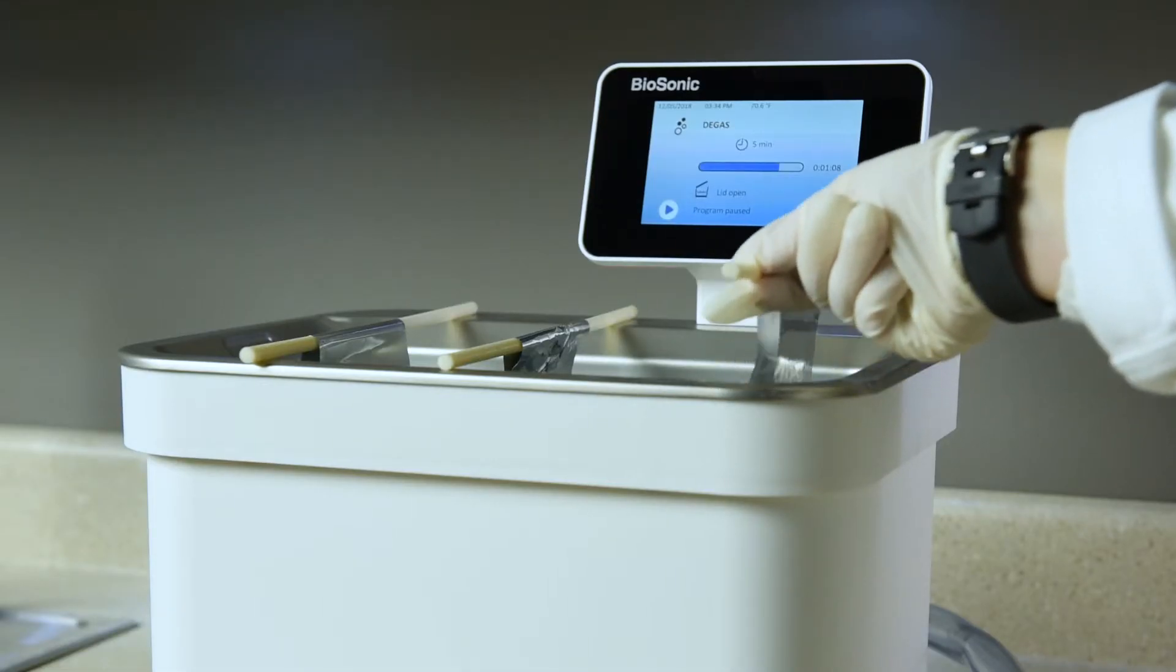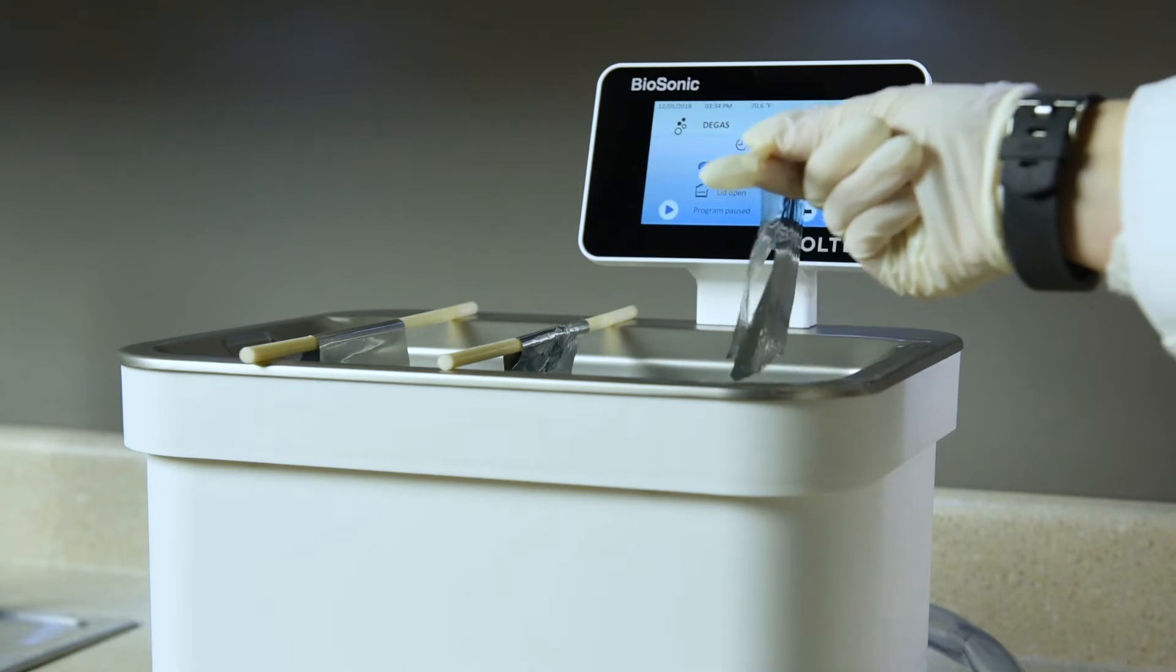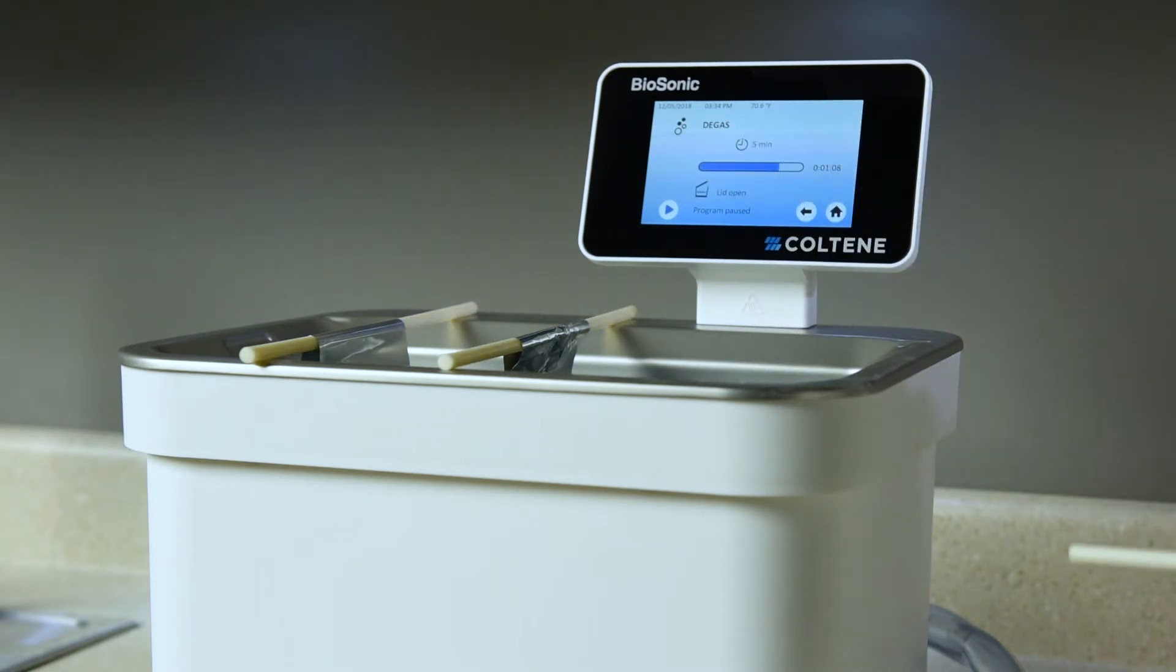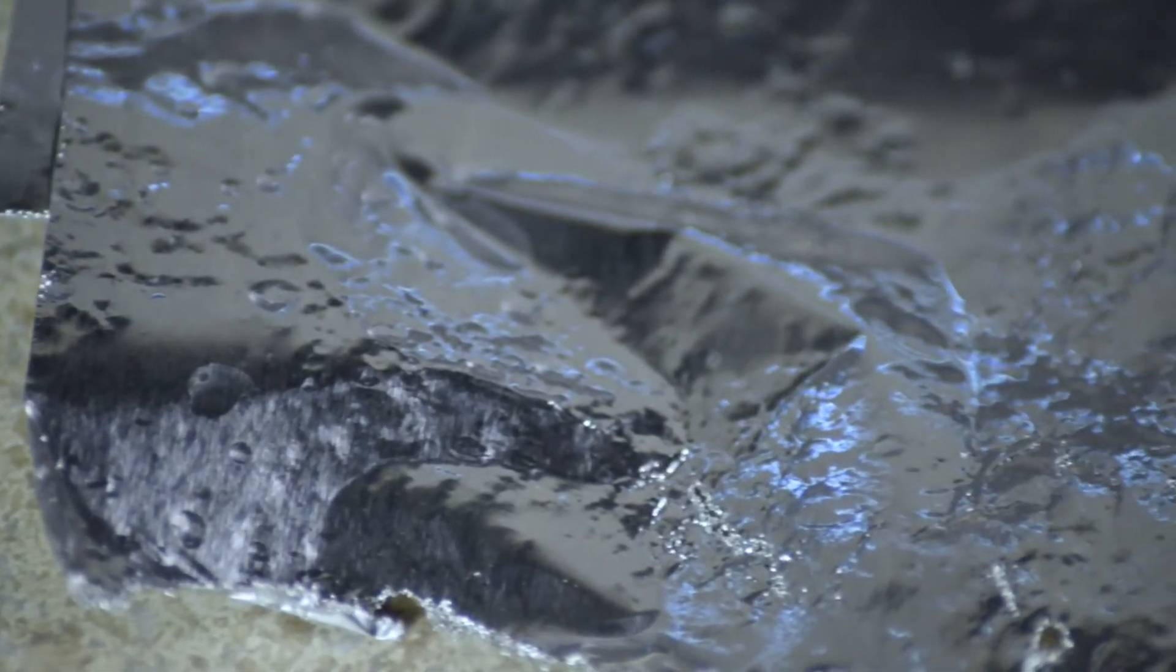Then, lift the foil out of the solution. An ultrasonic cleaner that is working properly will leave a pitted or wrinkled pattern in the foil.